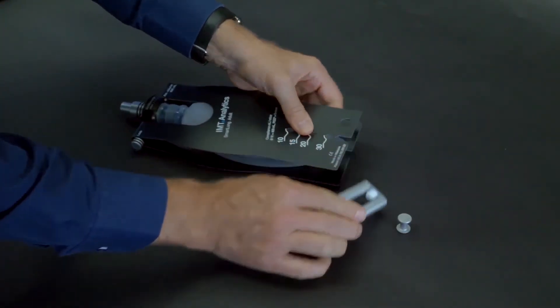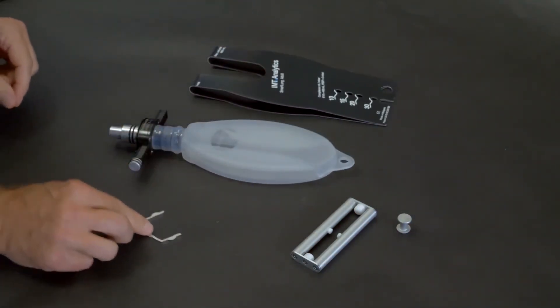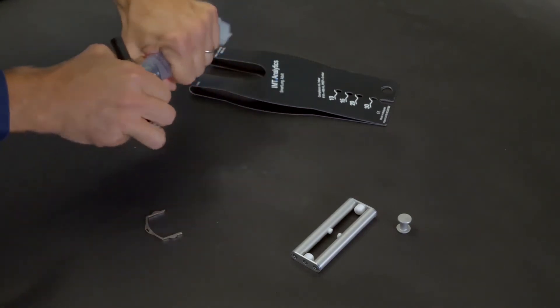Slide the compliance bar off the fiber plates. Slide the resistance head out and remove the whole assembly. Detach the silicone bag from the resistance head.